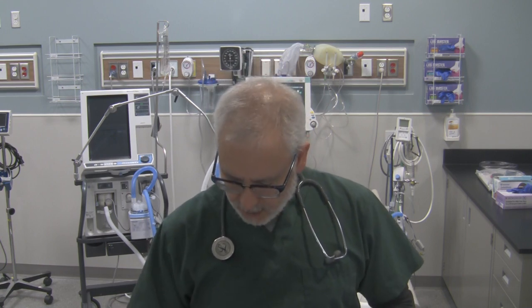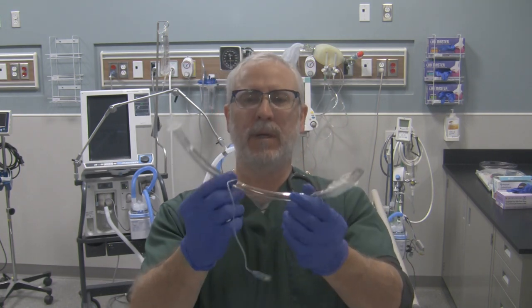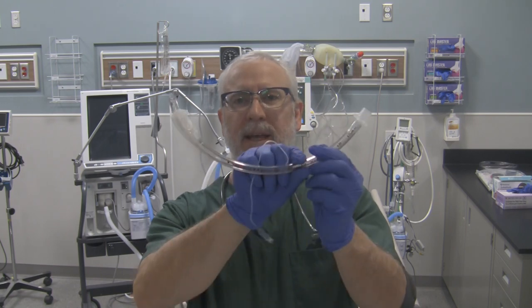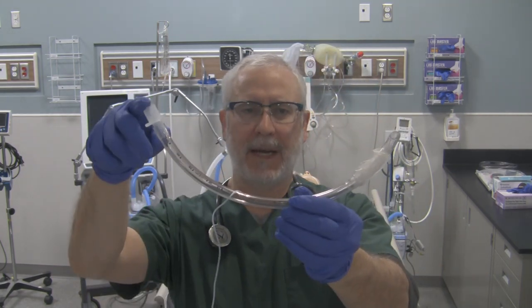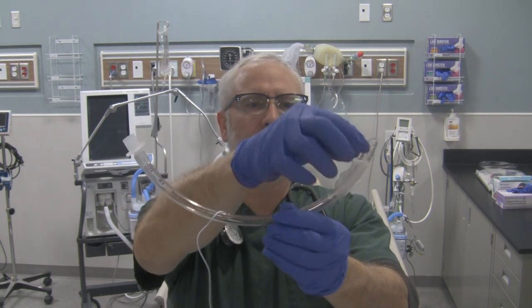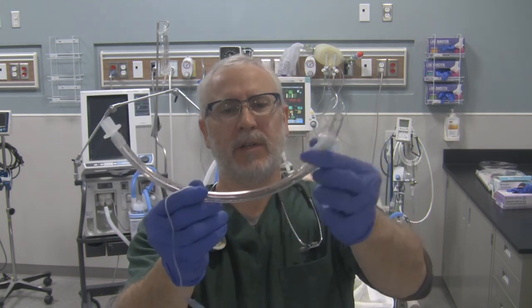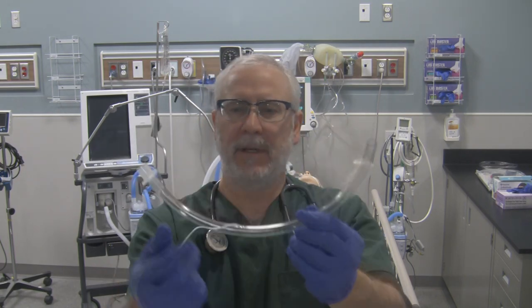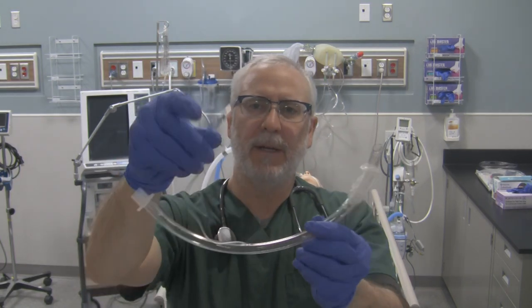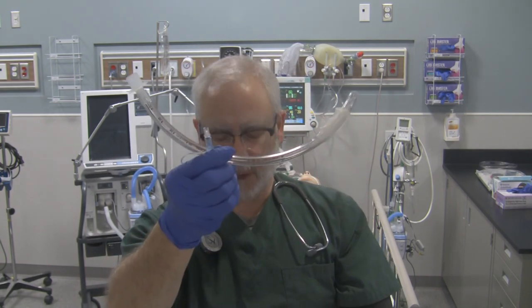I want to start off with your basic endotracheal tube. This is a size nine but it's a typical conventional endotracheal tube. Patient adapter end right over here, distal end, Murphy's eye — a little hole at the end there. You've got your cuff right over here. Cuff, pilot balloon line, and pilot balloon. Gets inserted into your patient. Not much to it.